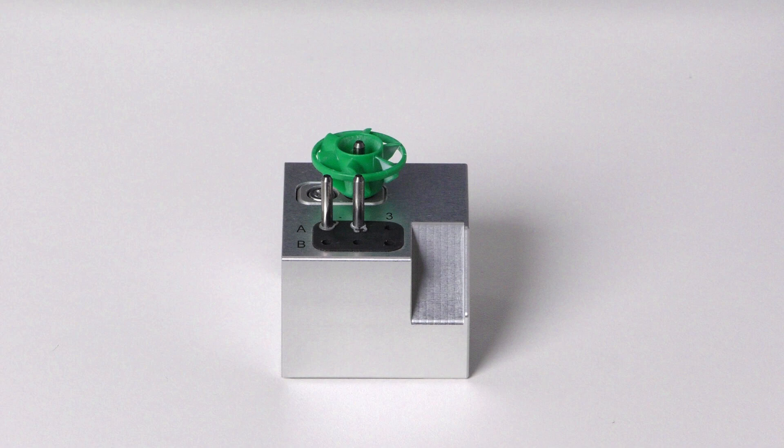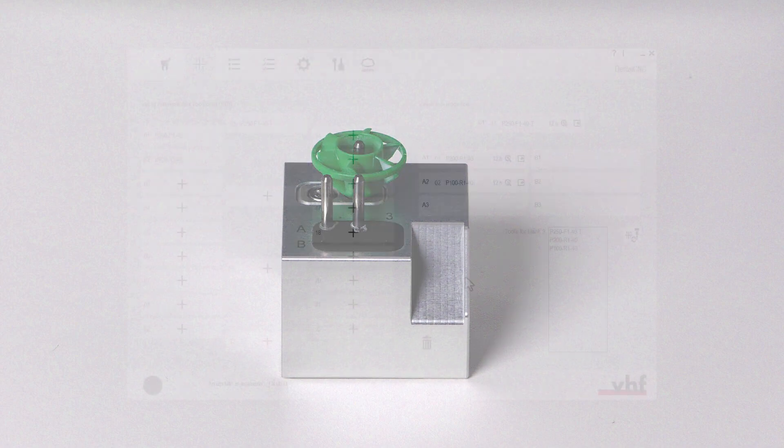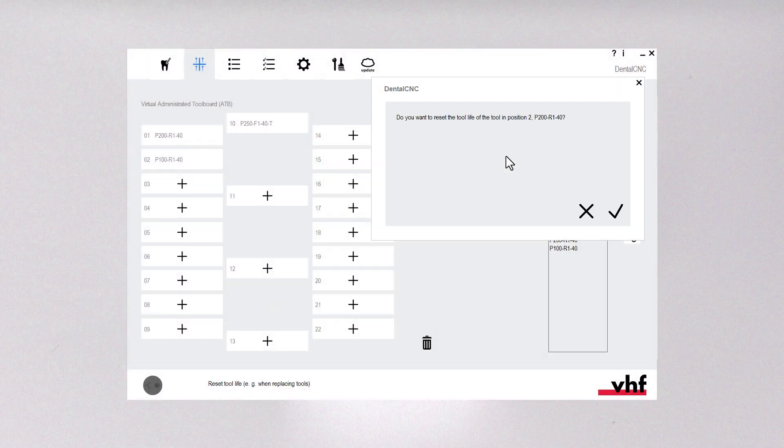If a tool that you inserted replaces an old tool of the same type, reset the tool life in Dental CNC.